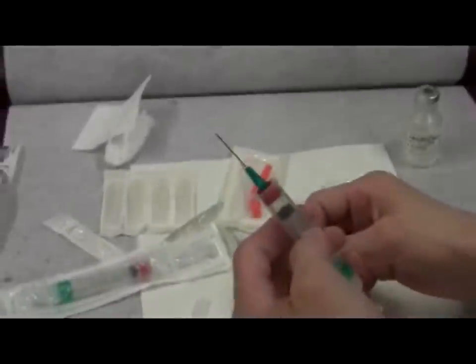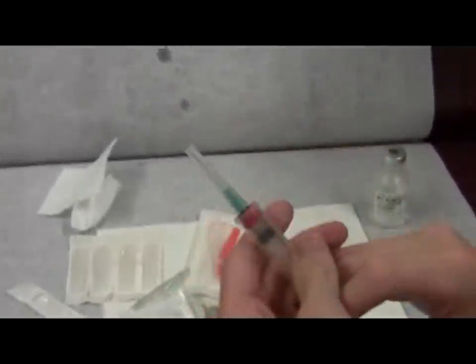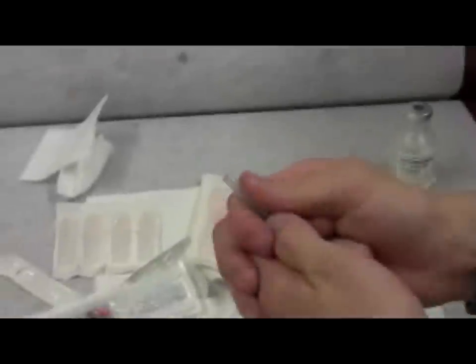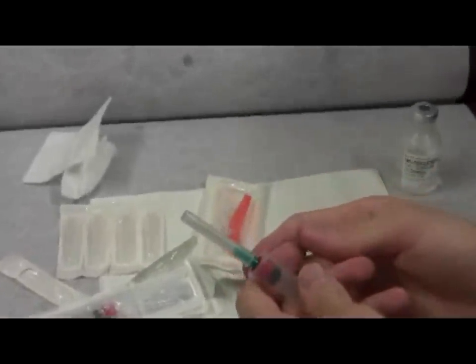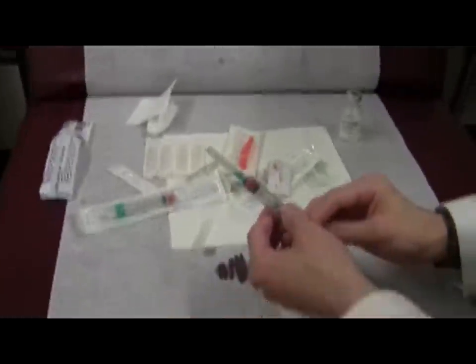If the cap is on tight, liquid and air may not express readily. If the cap is on with a click, stuff will still come out, but you fill up that volume with liquid and it may not come out as well. If you're getting air out of a used needle, point it away from yours and anyone else's eyes — and if possible, recap without touching the needle.